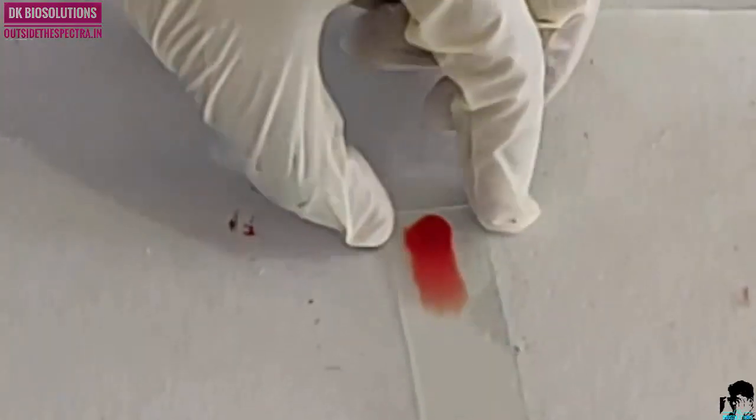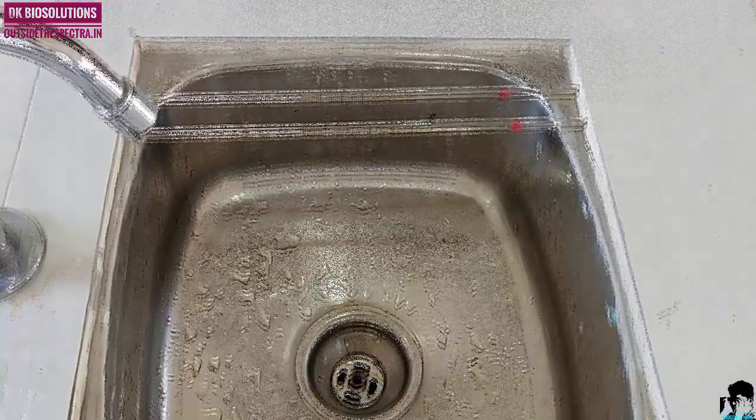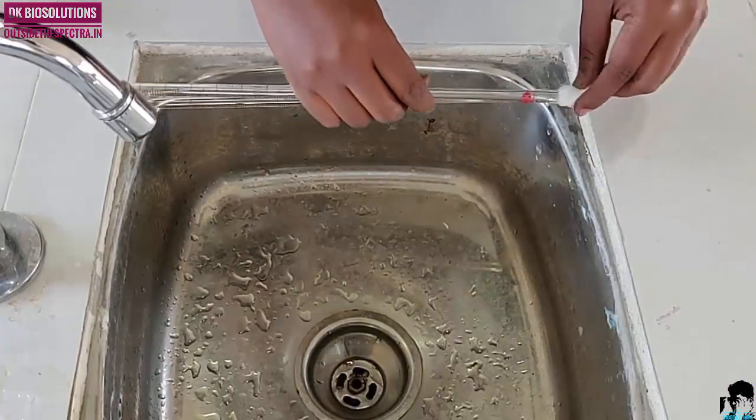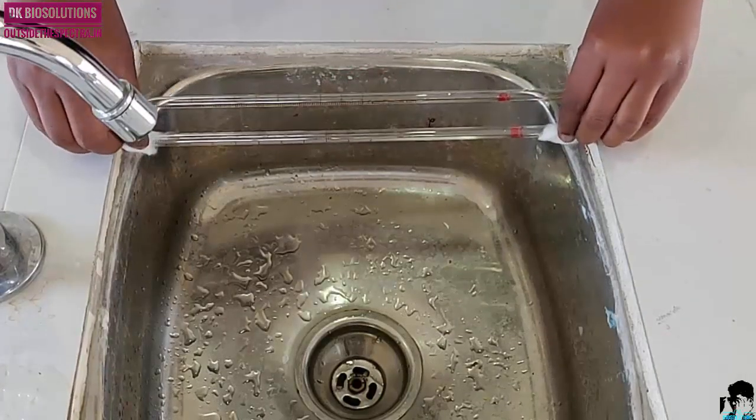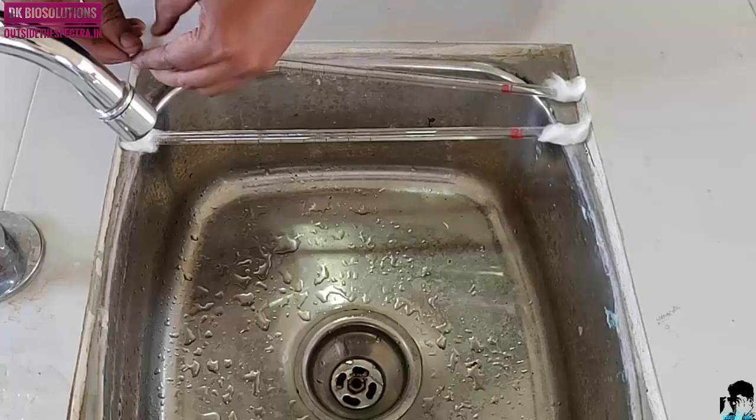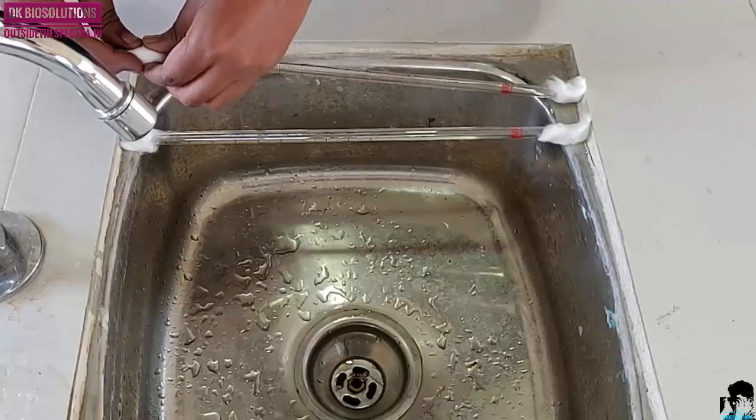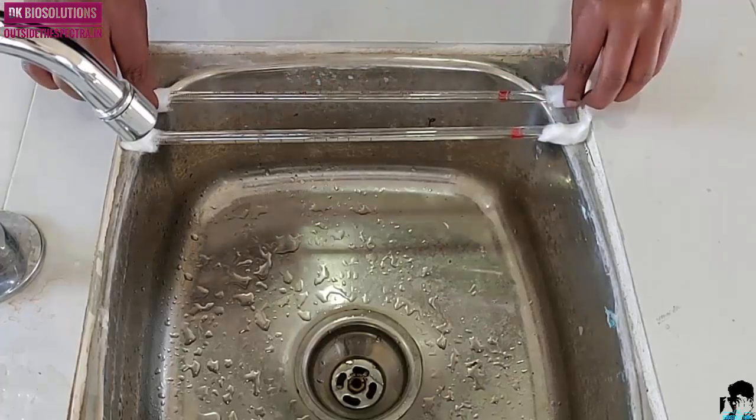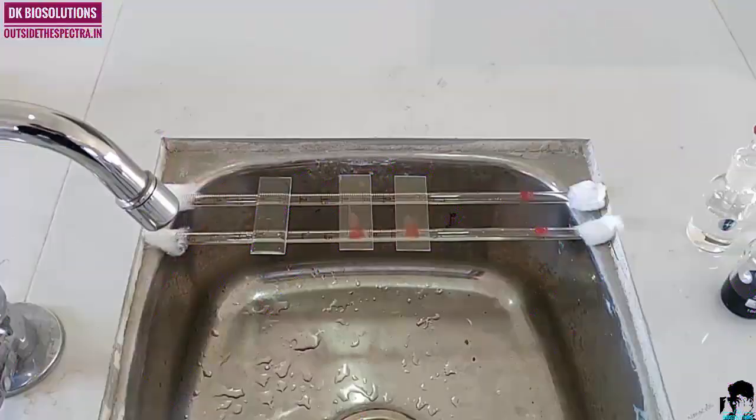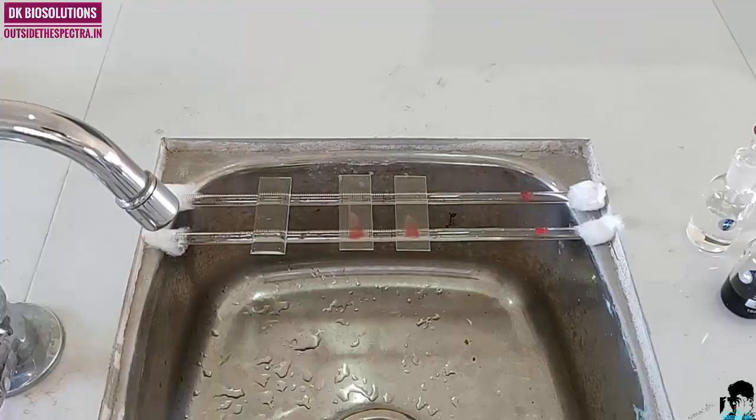Till the slide gets dried, prepare the staining rack. Now, put the air dried slide on the staining rack.